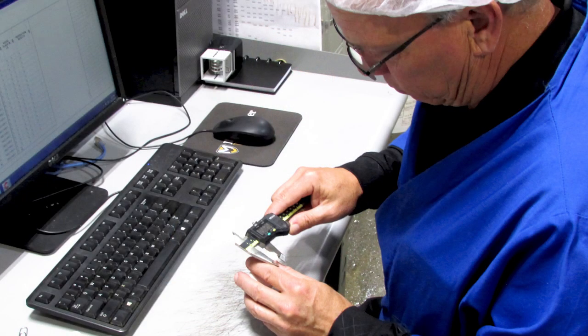Our device is made in America. Some might overlook this, but this is a great point to make as we create everything here, which decreases shipping times and assures you that you are getting an American-made, well-tested, FDA-approved product. Every piece is touched, inspected, and tested by human hands.